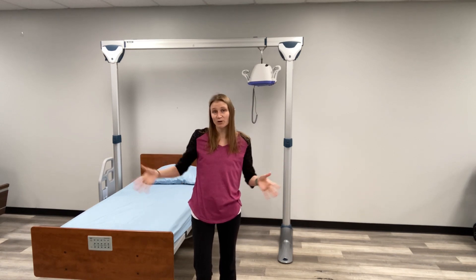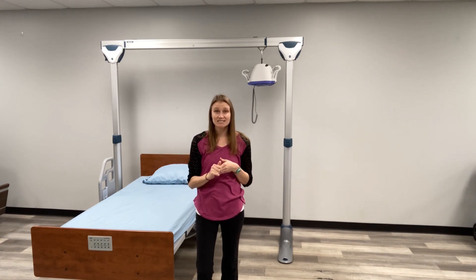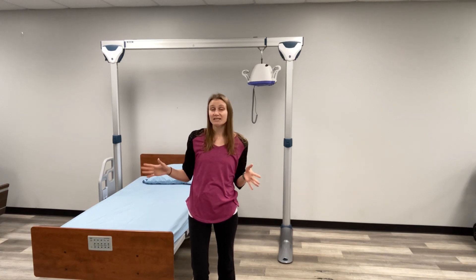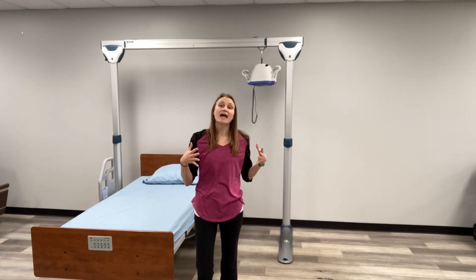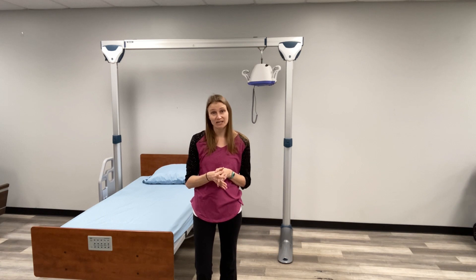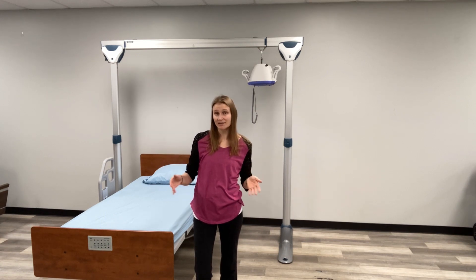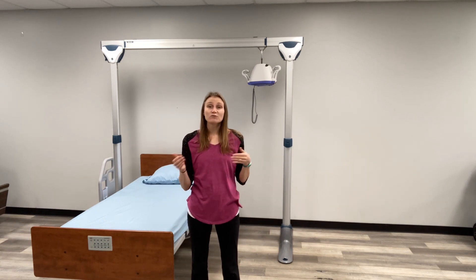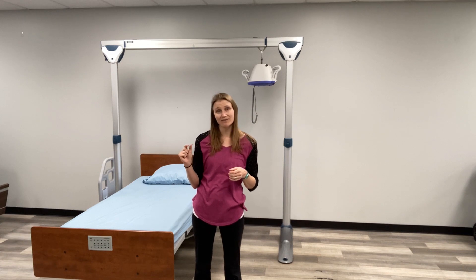There's nothing on wheels that, once you put the person in the lift, you have to move around. An overhead lift is designed to complete the same function — helping a client move from one place to another without someone having to push them while they're in a unit. The person goes in the sling, you press the button to lift them up, and then they are moved using some sort of pulley system back and forth with very little caregiver effort.